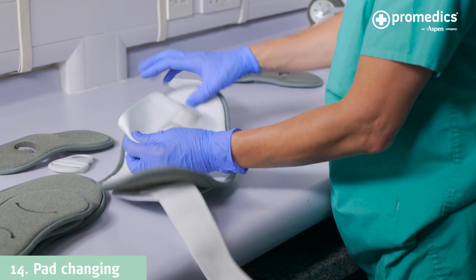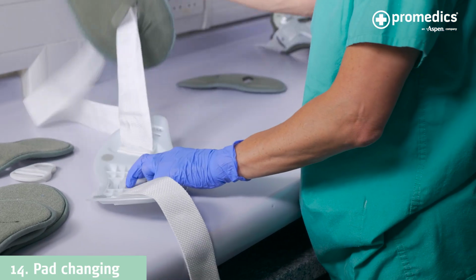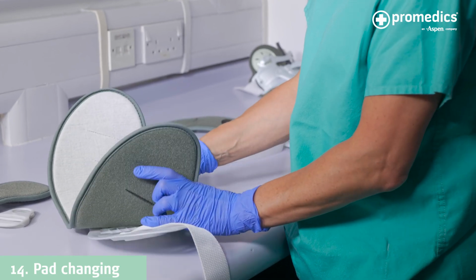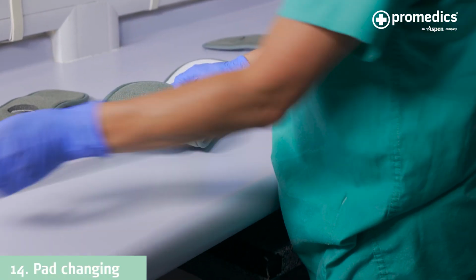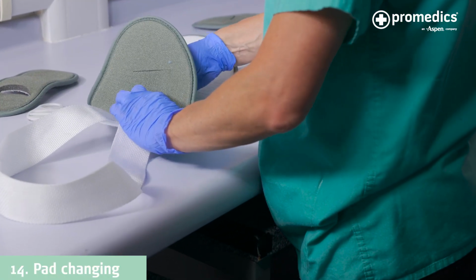To remove the pad on the back panel, unthread the straps on each side, then pull the pad off the back panel. To replace the back pad, begin attaching the grey-green side of the pad to the Velcro dots on the back panel. Once the padding is aligned with the plastic, the straps will need to be rethreaded through the padding and plastic slots.